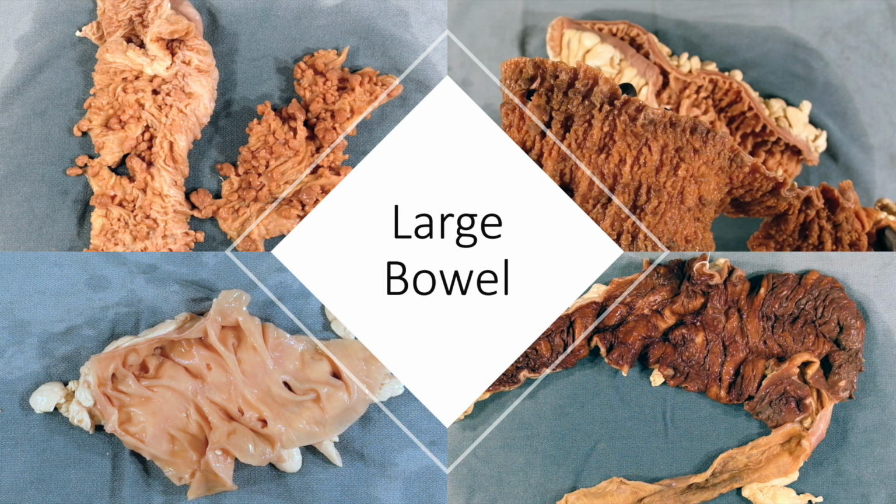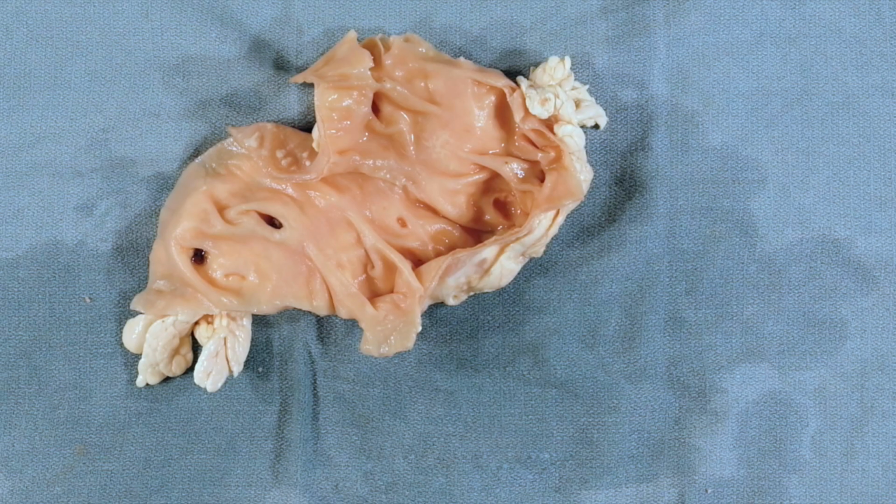To get started, we'll be looking at specimens from the bowel. We'll start with common benign entities, moving through infectious entities, finally finishing with more aggressive malignant entities. We can start by appreciating the normal parts of this portion of large bowel and colon.